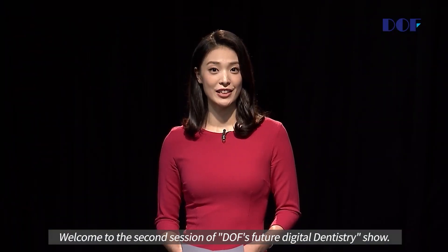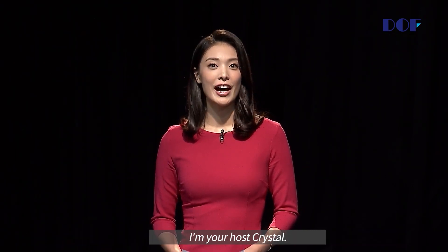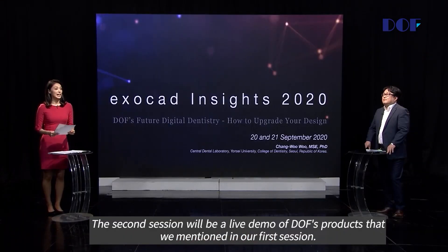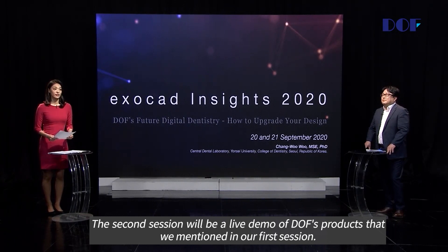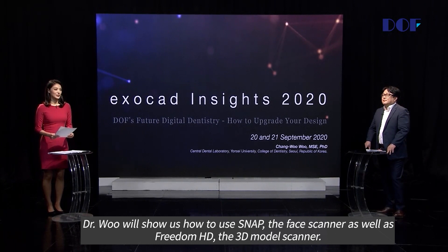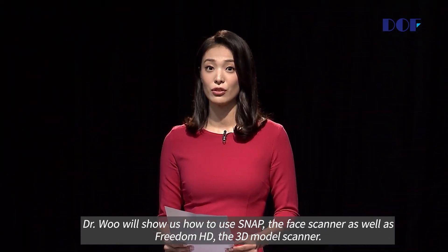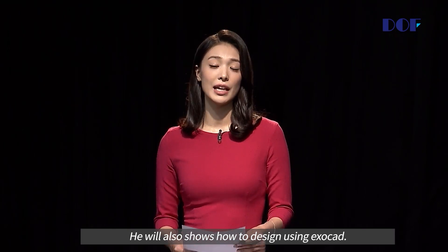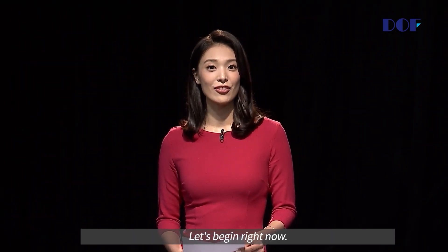Welcome to the second session of DOF's Future Digital Dentistry Show. I'm your host, Crystal. The second session will be a live demo of the DOF products mentioned in our first session. Dr. Wu will show us how to use Snap, the face scanner, as well as Freedom, the 3D model scanner. He'll also show us how to design using ExoCAD. Let's begin right now.